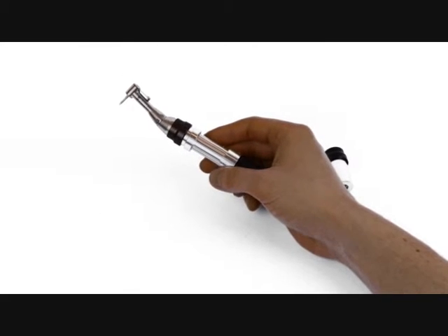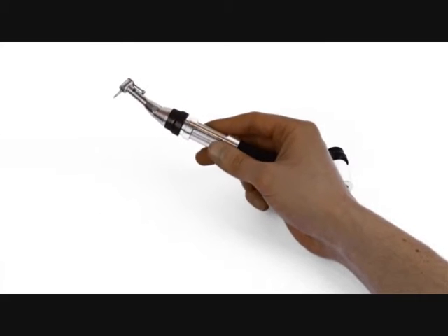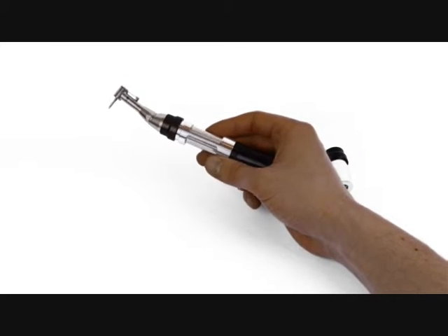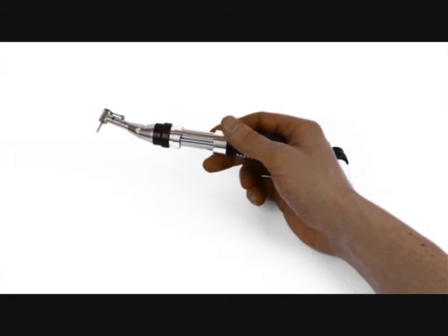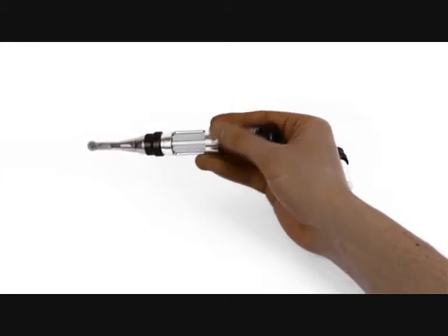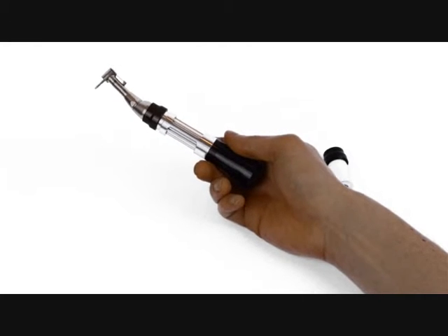This allows very safe manipulation of the prosthetic components of the implant face and during surgery for placing cover screws and healing abutments. It's extremely useful and a great gadget to have.